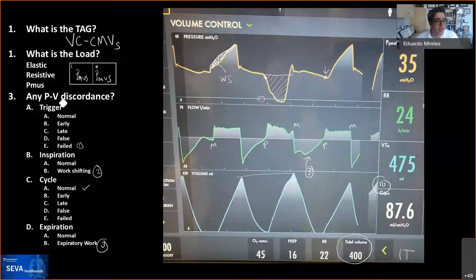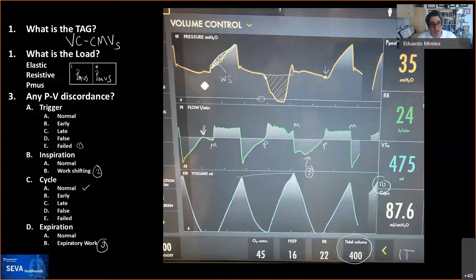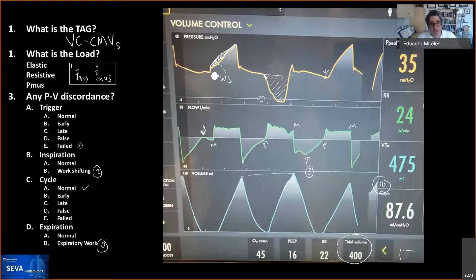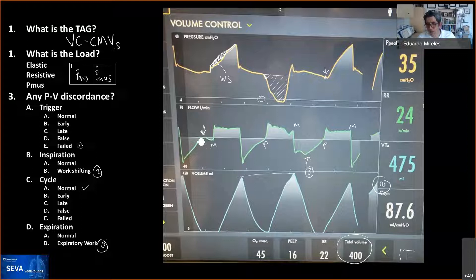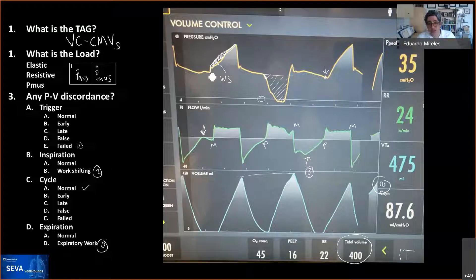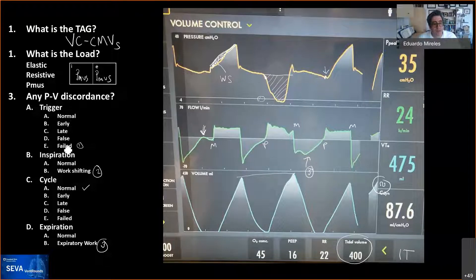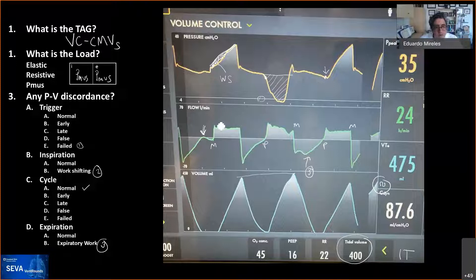In the trigger analysis: you'll recognize this as a failed trigger — the patient did not generate enough negative pressure to trigger a breath. Even though he almost crossed the flow baseline, with a pressure trigger set, he failed. This is not due to auto-PEEP — one of the most common causes of failed triggers. This is because the trigger mechanism was set to pressure, either inadvertently or intentionally. We call it a failed trigger rather than a missed trigger because the patient is making effort but it's not triggering — the effort failed to generate a breath.